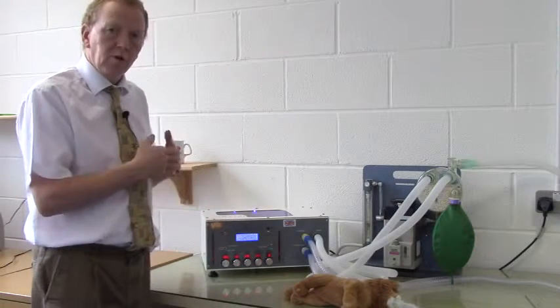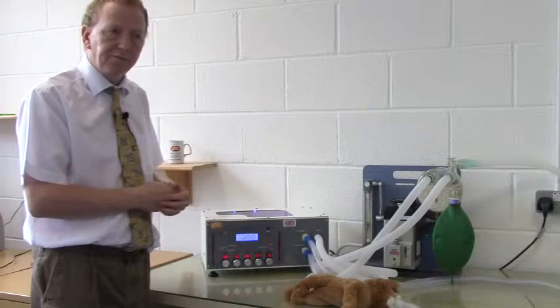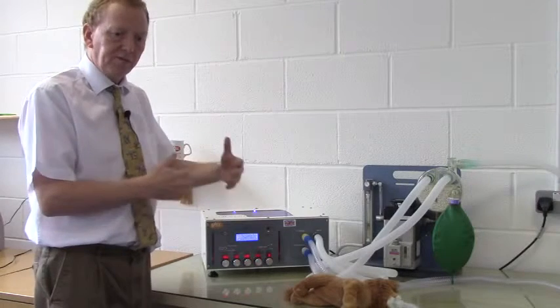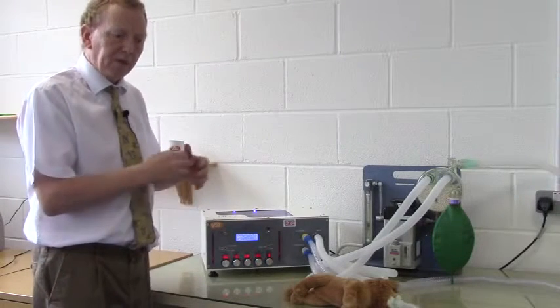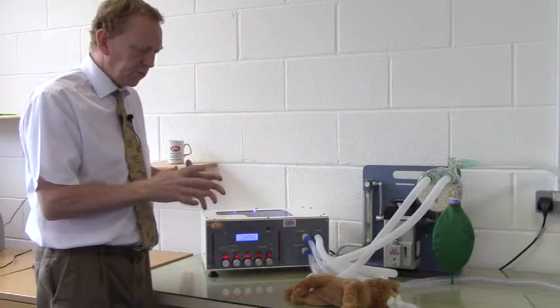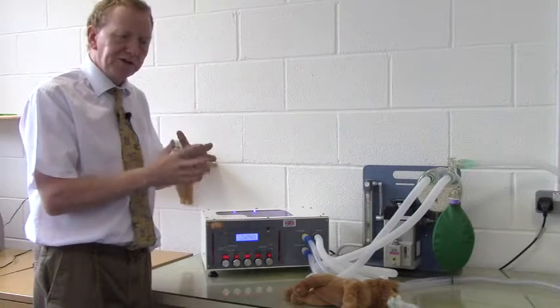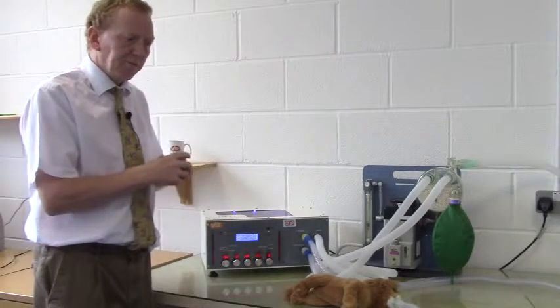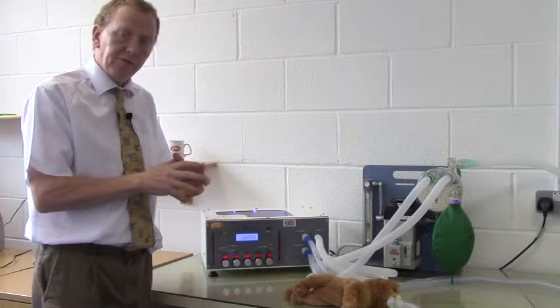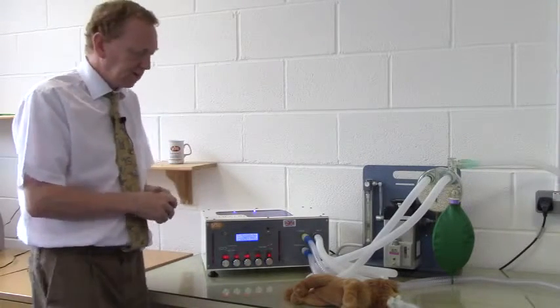In pressure cycling, we will deliver a constant flow until a certain predetermined pressure is reached. This is subtly different from volume cycling, where a volume is delivered until the whole volume has been delivered, irrespective of the pressure reached, unless we set a safety valve limit. With pressure cycling, the flow is delivered until a certain pressure is reached, which will achieve the same function, but if we occlude the chest or interfere with delivery in any way, we are certain that the pressure will never be exceeded, and we'll demonstrate this now.